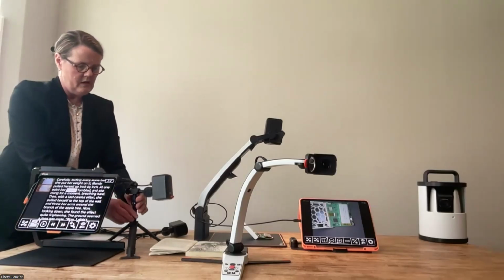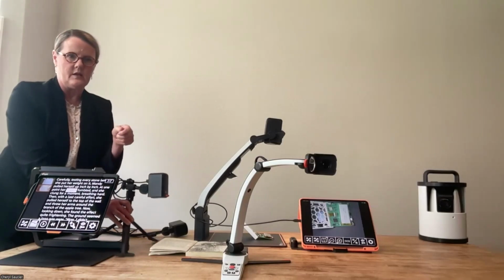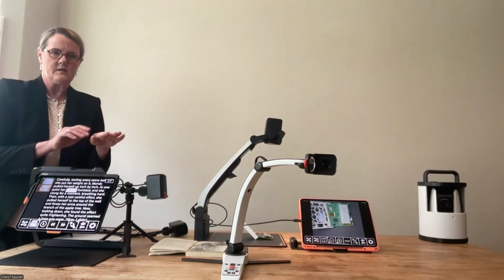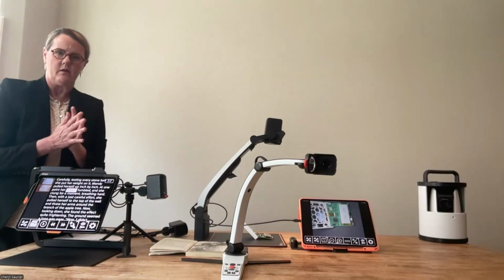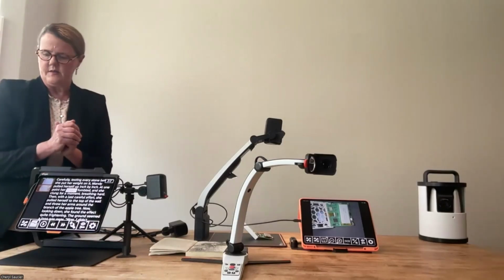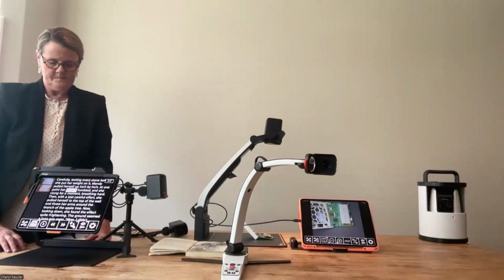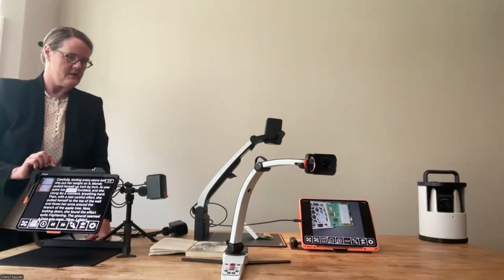And hopefully we will see a feature soon where you can close the tripod and then insert it into, say, a clamp that's on a desk to save you a little bit of footprint on a desk space. Before I go on, I just want to pause and ask Lizzie, do I have any questions so far? No, you do not. Okay, great.